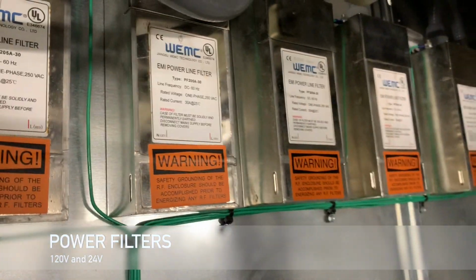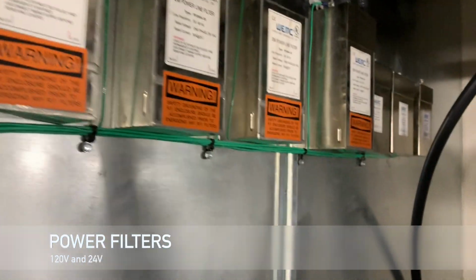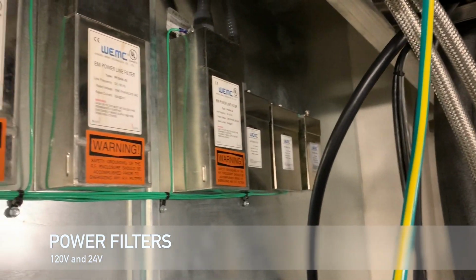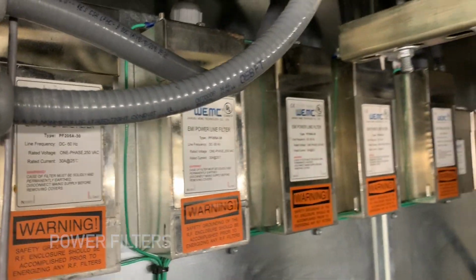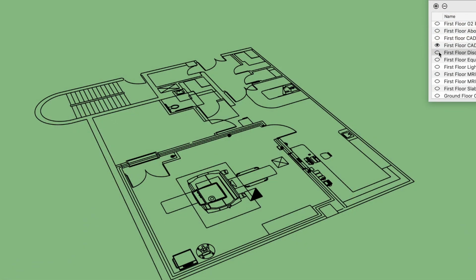Here you have your power filters. They are 120 volts and 24 volts on the right. These power filters step down power as it comes in appropriately for the outlets and the lights inside of the MRI scan room. Here you have 4 disconnect boxes above ceiling.